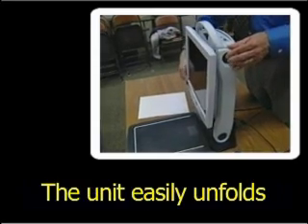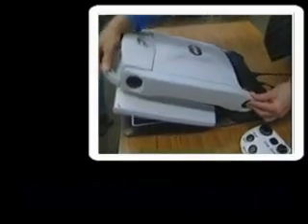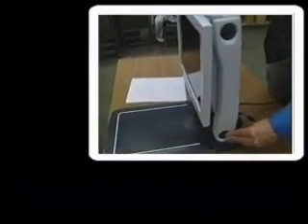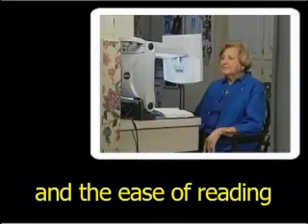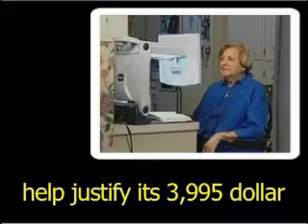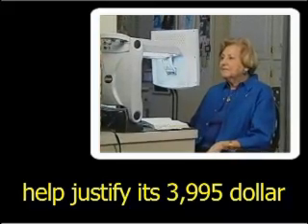The unit easily unfolds and sets up for reading. The flat panel viewing area folds up against the rest of the unit. The portability of this unit and the ease of reading help justify its $3,995 price tag.